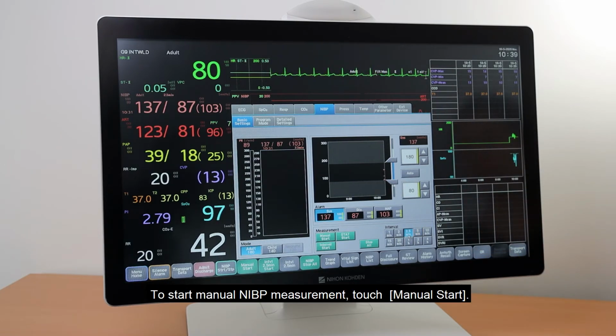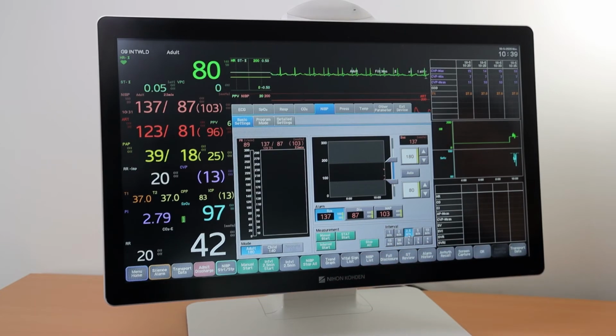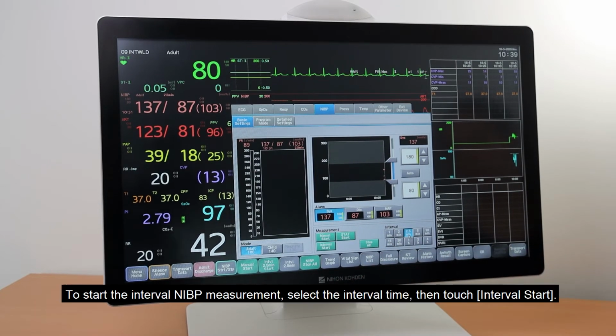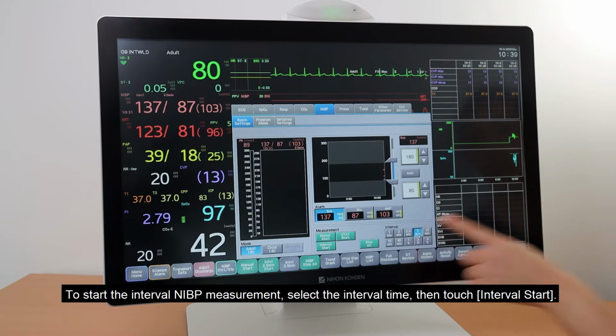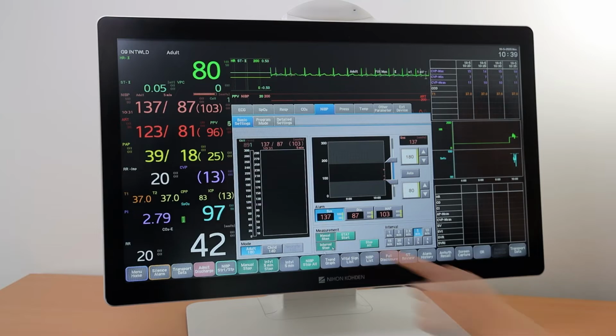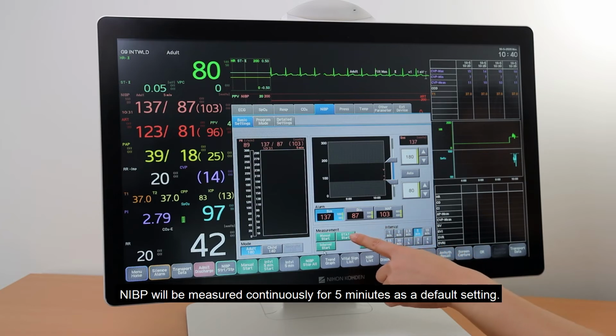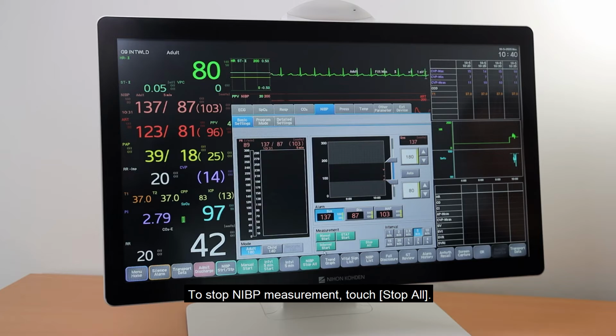To start manual NIBP measurement, touch Manual Start. To start the interval NIBP measurement, select the interval time. Then touch Interval Start. If you need a continuous NIBP, tap on Stat Start. NIBP will be measured continuously for 5 minutes as a default setting. To stop NIBP measurement, touch Stop All.